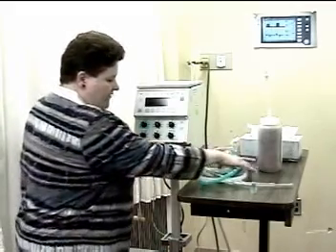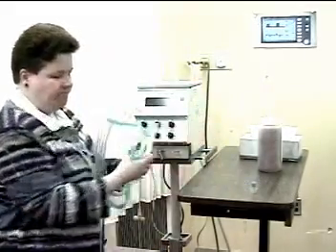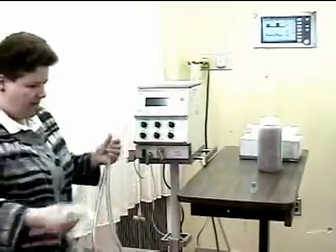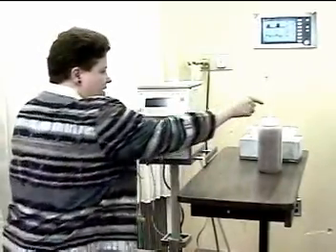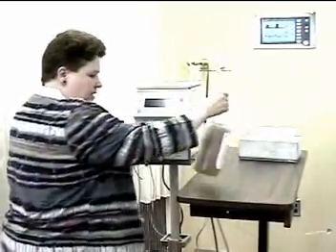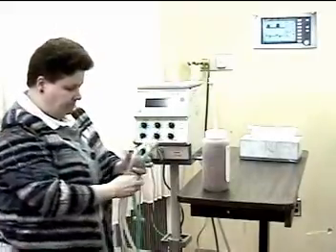What I have gathered is a circuit, an HME, and a patient simulator.